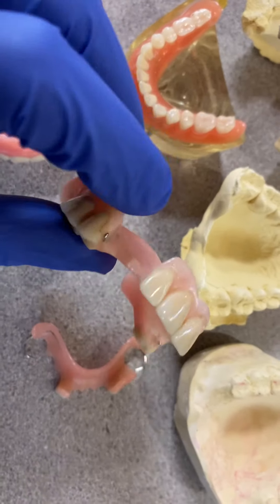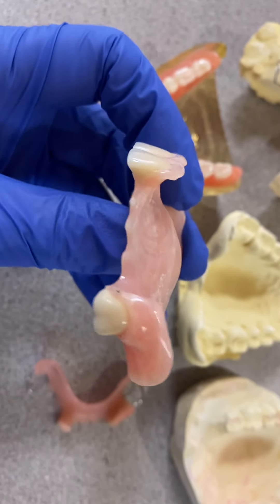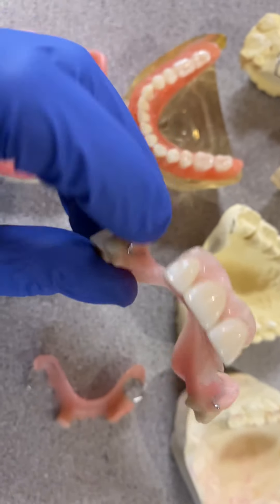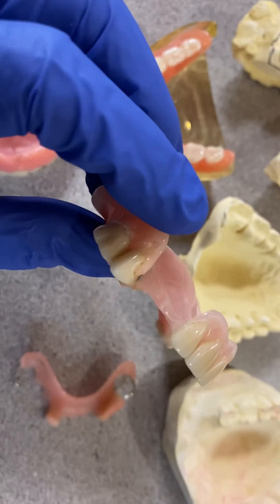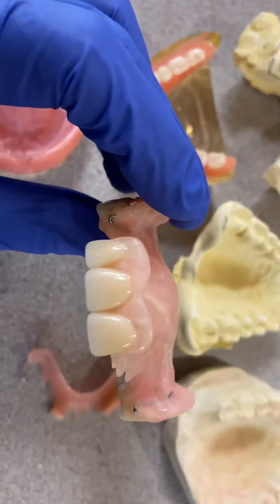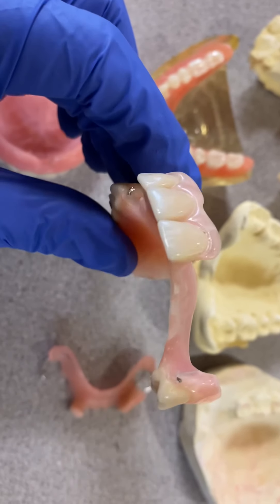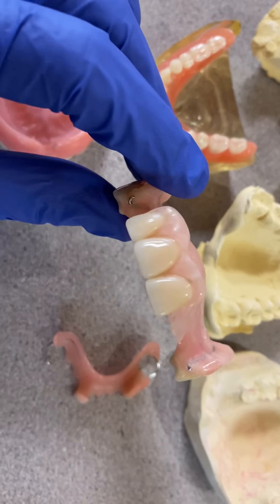In here we have a couple of metal hooks — we cut it off — and this helps to retain the denture from coming down. It's also for the upper teeth.